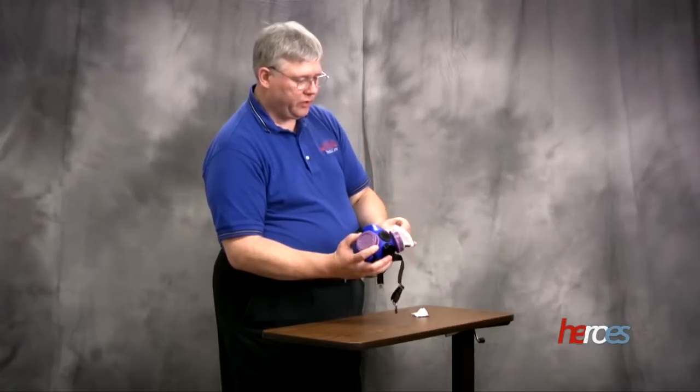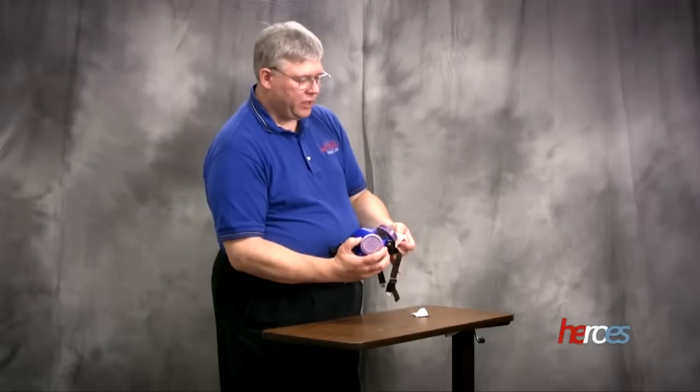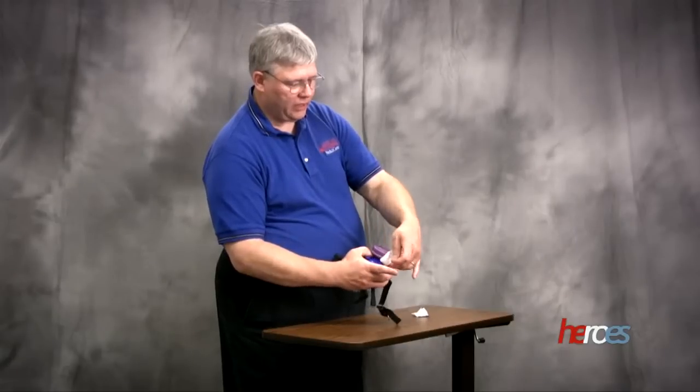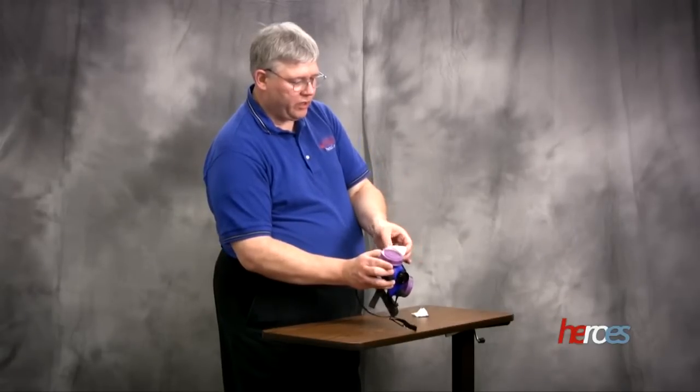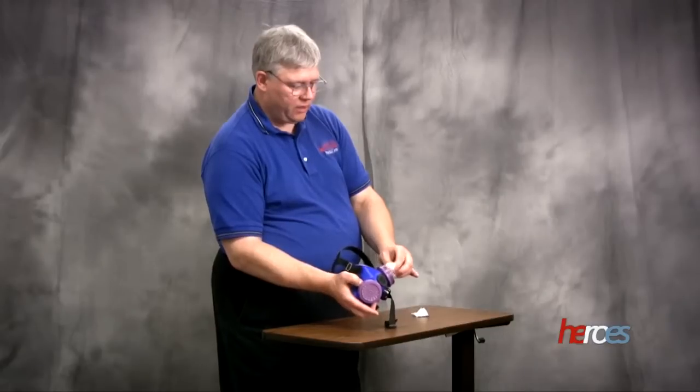You can wipe off the filter cartridge on the outside. You want to make sure you don't wipe off the top, or at least if you do, do so lightly so you don't get any solution on the inside. You can dust off slightly on the outside with the wipe.